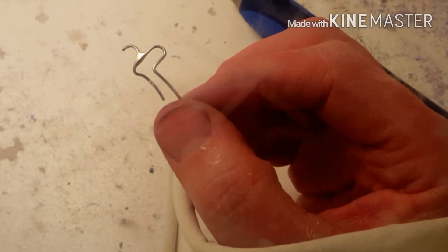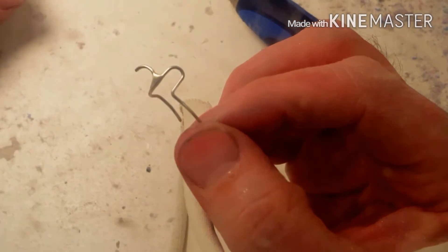Anyway, I'm just about done. I'm going to polish this up, pumice and polish it and then get the final result in a second.